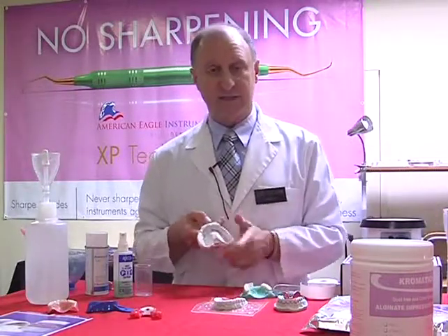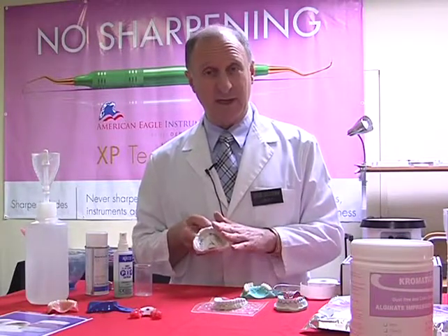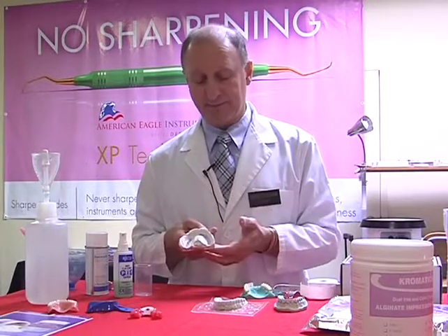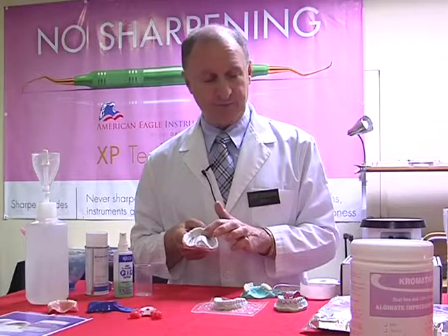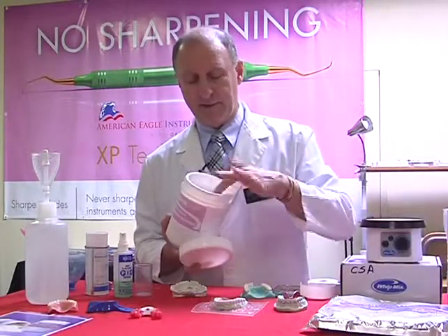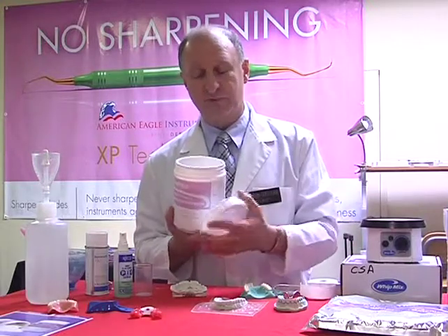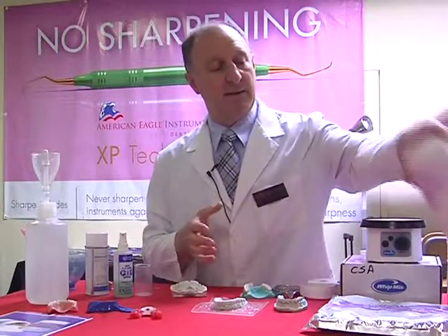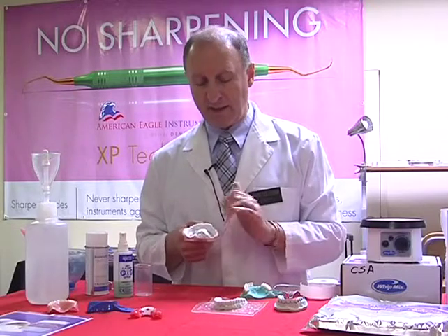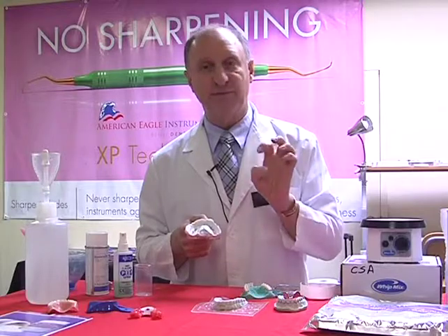Now, most alginates on the marketplace store for around 6 hours. That means to say if we don't pour them quickly, the material itself has a tendency of contracting, shrinking, and changing its accuracy. This material is actually, through the manufacturing procedure, they coat the particles with a polymer. And so what that does, it keeps the condensation, the moisture present within the material. When we're handling the material, it still handles a little bit thicker but nicer to work with, and we've got a nice set. Now, once the material is set like this, we have an accuracy of 4 days.